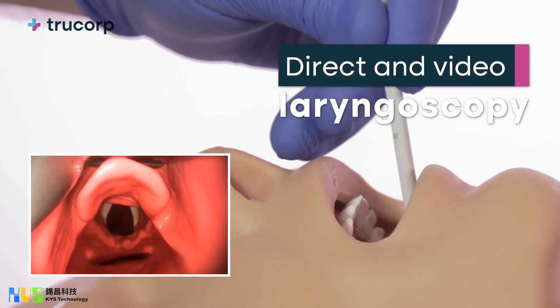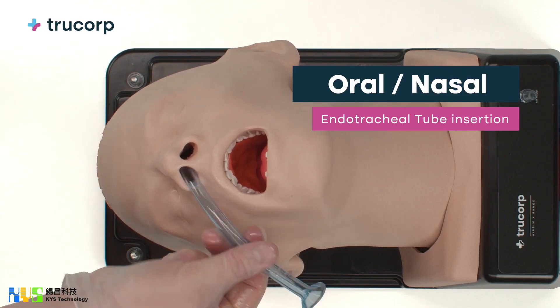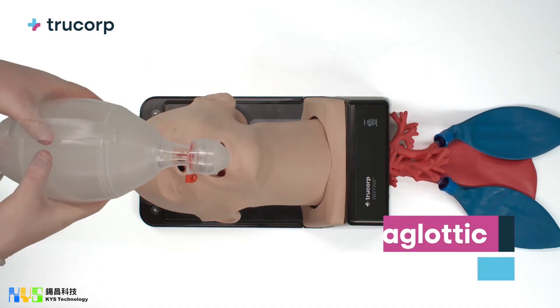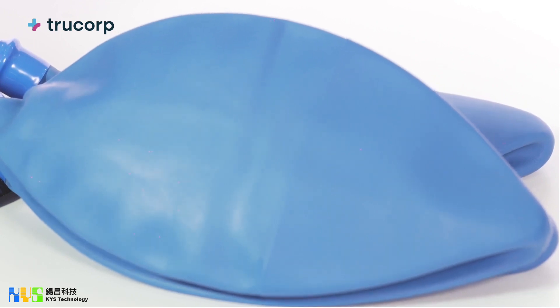Direct and video laryngoscopy, oral nasal endotracheal tube insertion, full range of supraglottic airway device insertion, and single lung isolation techniques.